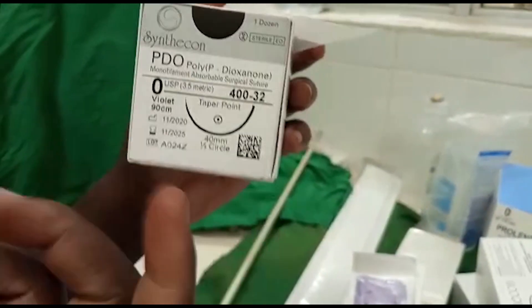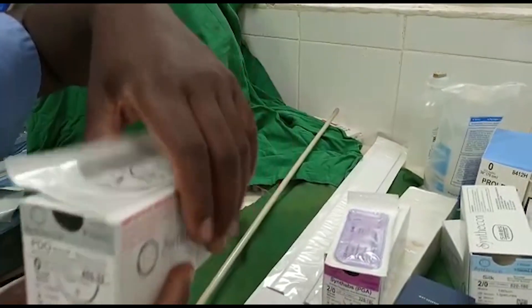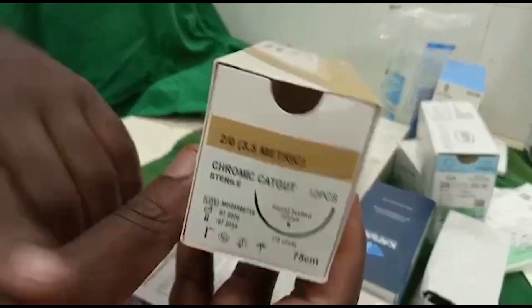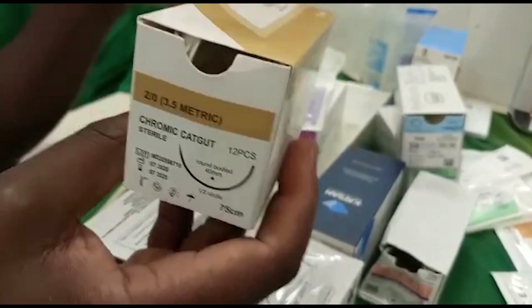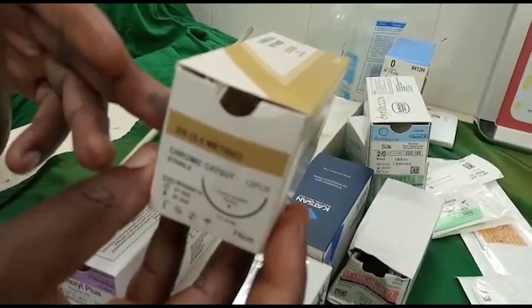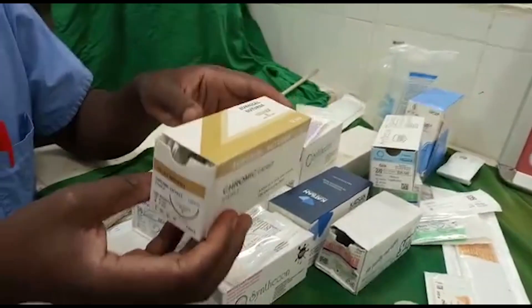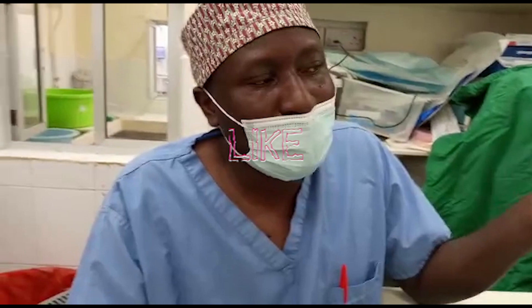This is the biggest PDS that we have — just examples of absorbable sutures. We also have a suture called chromic catgut, which is being phased off the market, but we can still order some. These absorb very fast — within seven days — and can be used in mucous membranes and liver lacerations. That's all about sutures, and I hope this presentation helps us understand what we have in terms of sutures and their classification. Thank you.